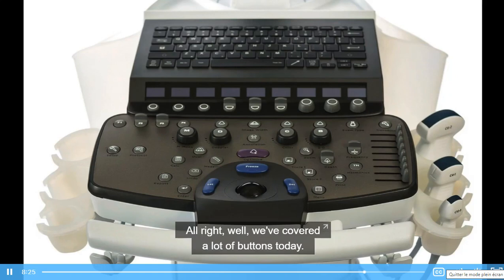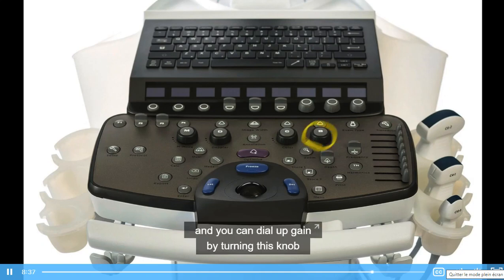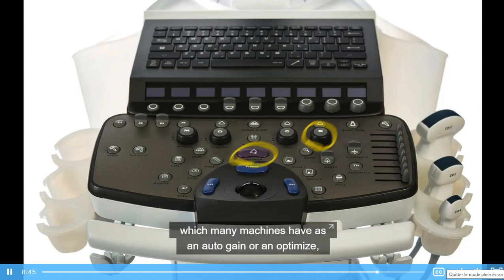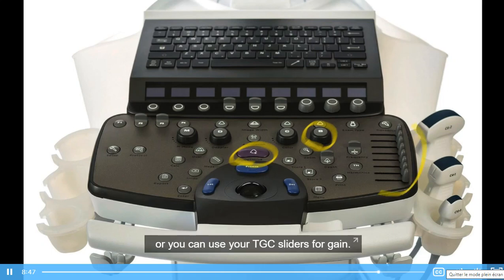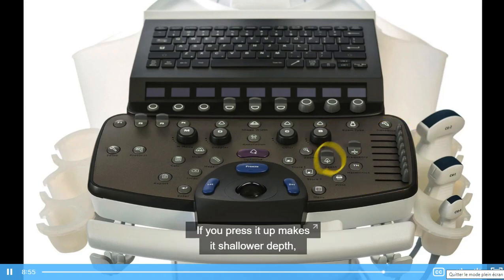All right, well, we've covered a lot of buttons today. I just want to do a quick review so that you know how much you've learned. If you look on this ultrasound machine, we first talked about gain. And you can dial up gain by turning this knob like a volume knob manually. You can hit this optimize button, which many machines have as an auto gain or an optimize, or you can use your TGC sliders for gain. We also discussed depth, and there's the depth button. If you press it up, it makes it shallower depth. If you press it down, it makes it a deeper depth.